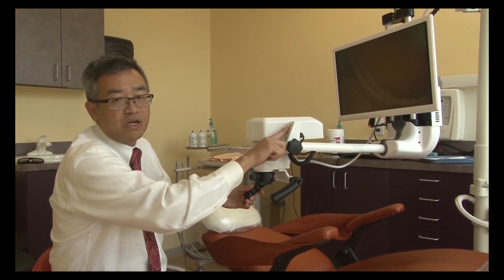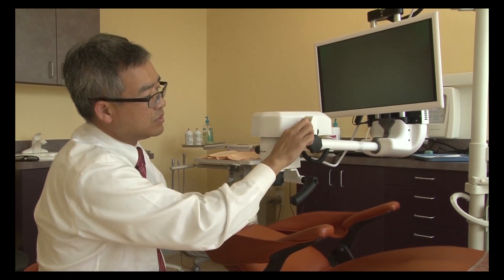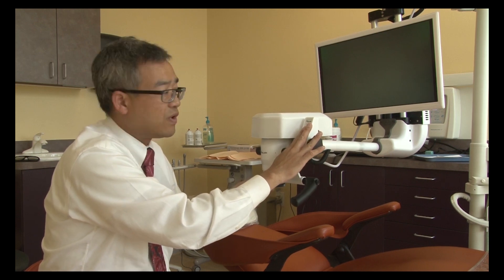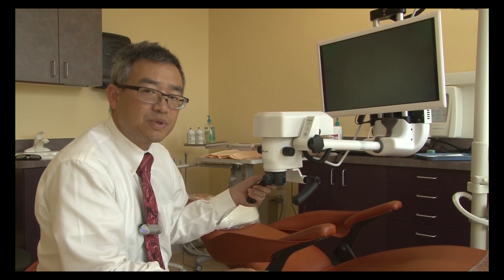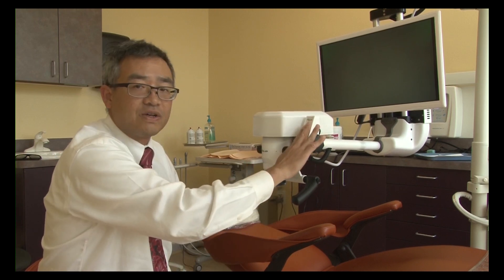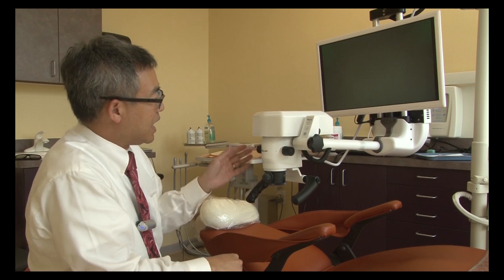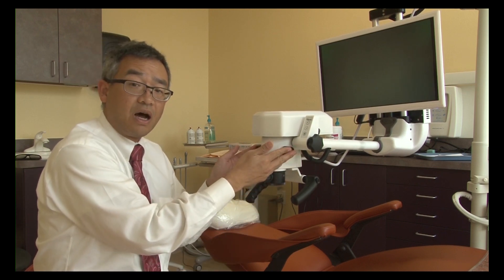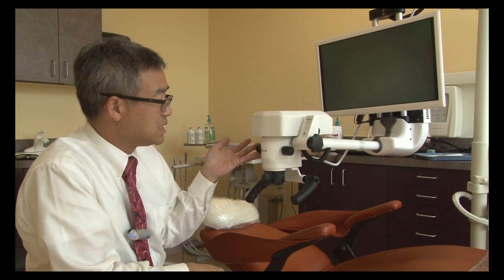Here's the power — you can increase the intensity of the lighting, but this should not be used unless you are in very dark areas of the mouth. It's set up optimally to work without having to initially play with the lighting most of the time. Here is the conventional six steps of the microscope, taking you anywhere from 3x to 24x magnification.